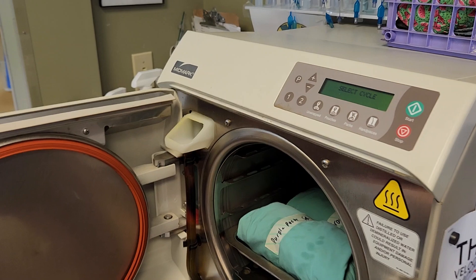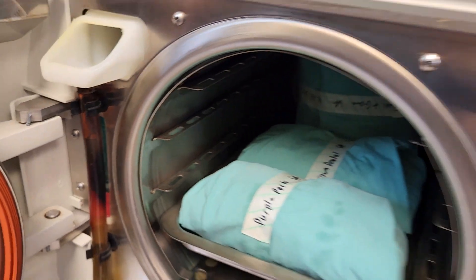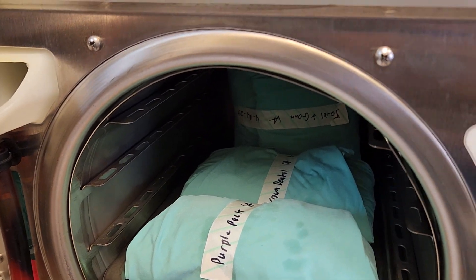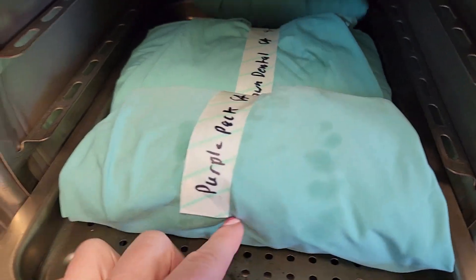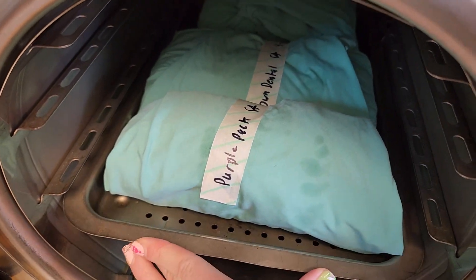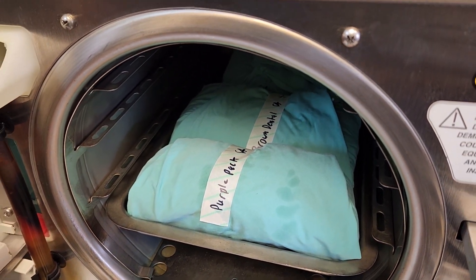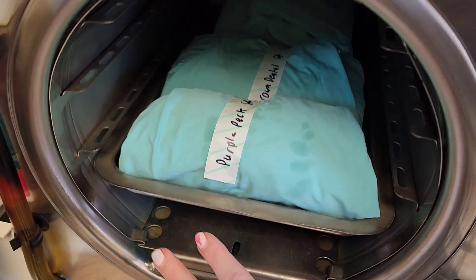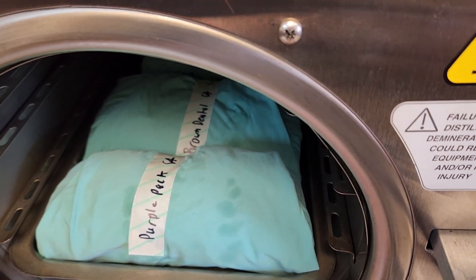She filled it almost to the top — it's way up in the green. Talking about not having the packs touch the sides of the autoclave because they will burn that way. It's equally important that the packs are actually on the tray. This tray is a vented tray with holes in it. As the steam does its thing, the autoclave will eventually cool down, the steam will re-condense into water, and it's going to fall to the bottom of the machine and drain out through a drainage hole.